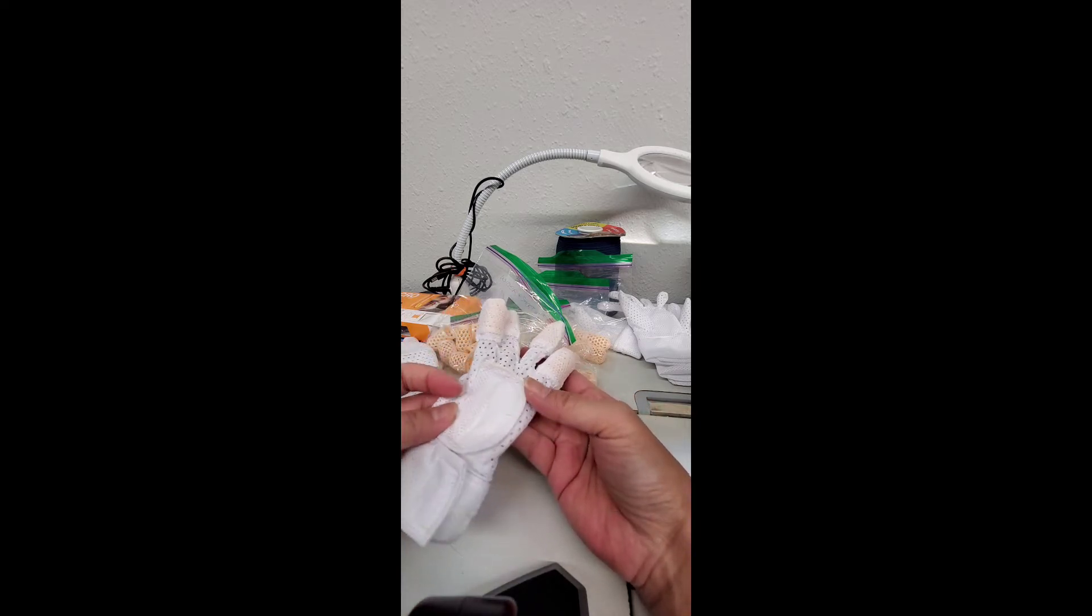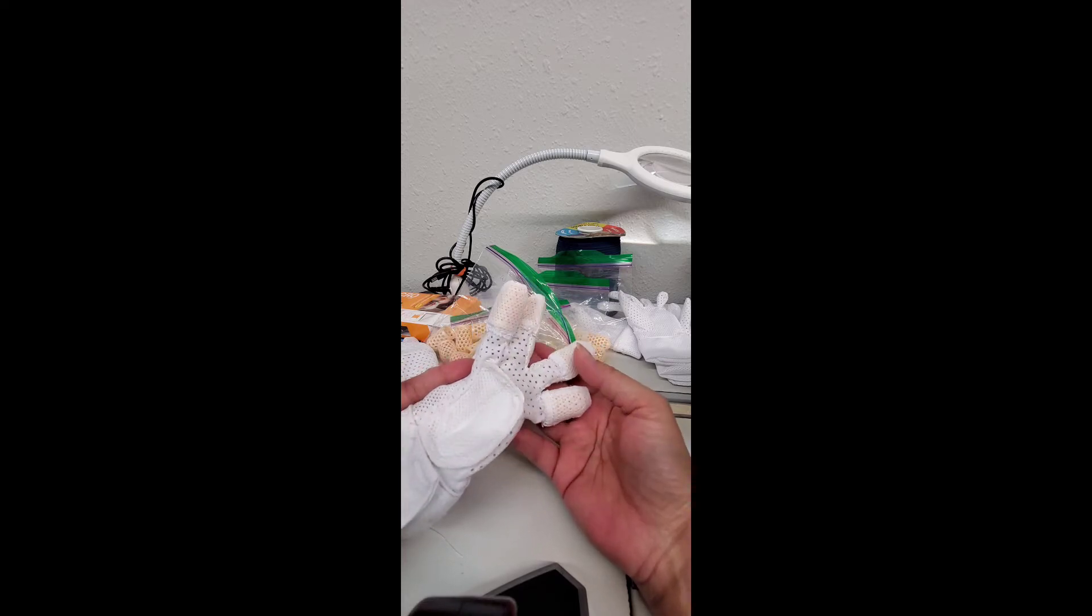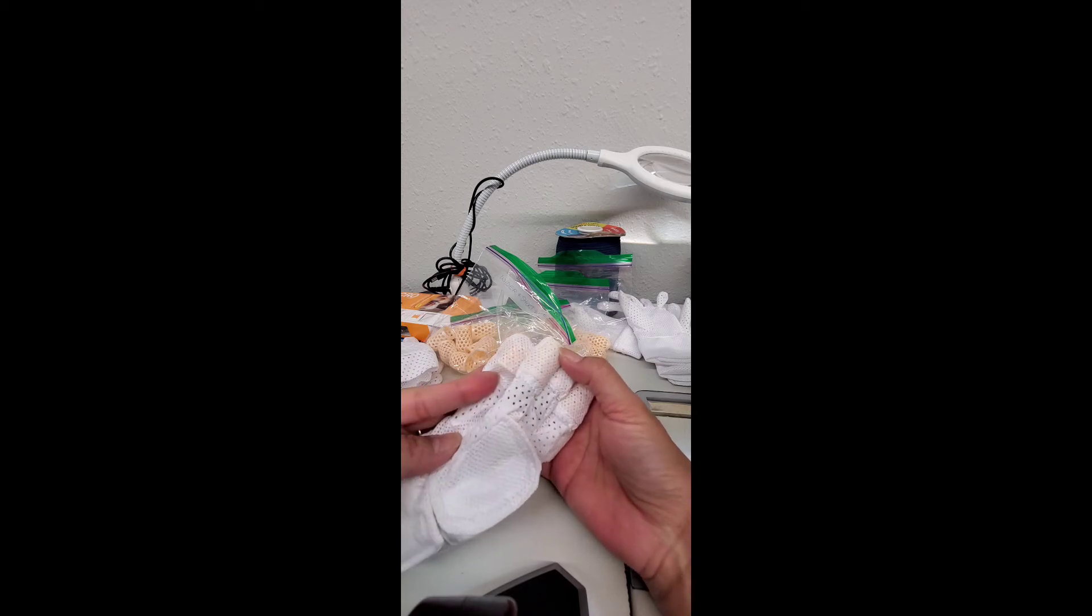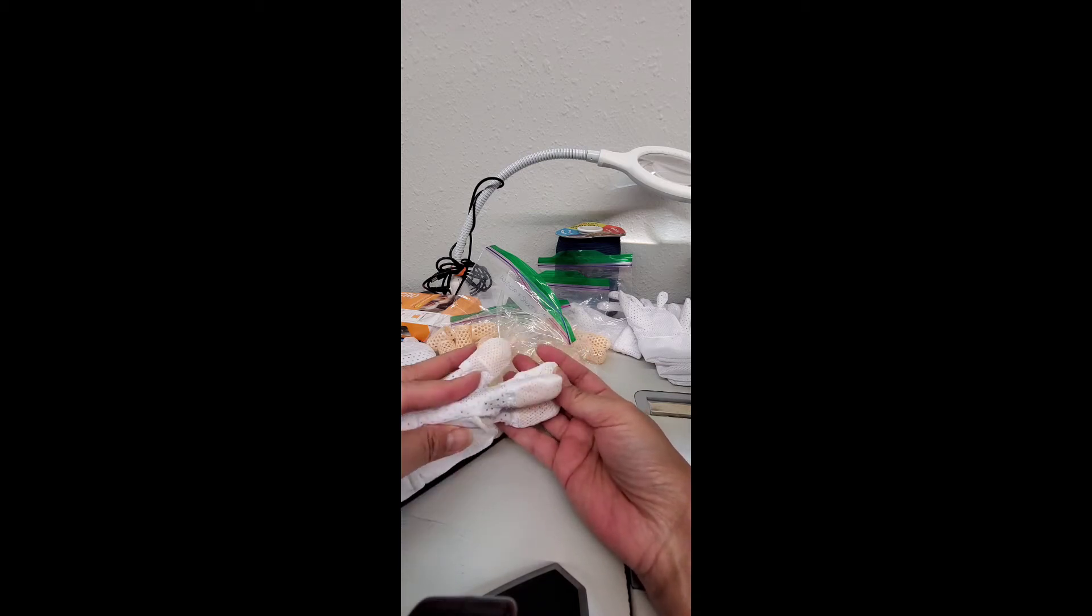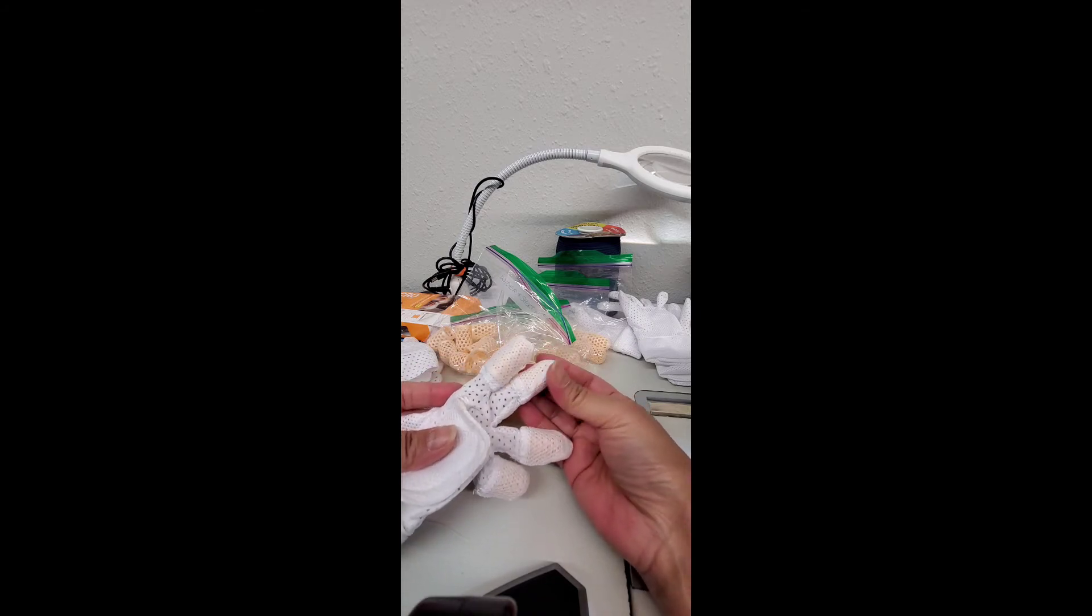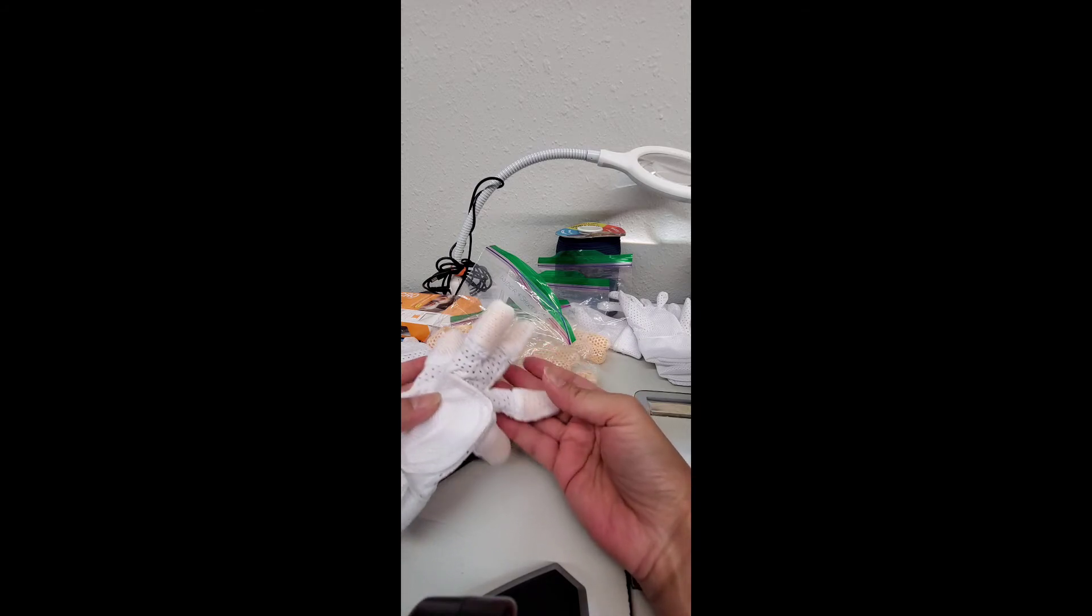Anyhow, these are for the kiddos that want to still move their fingers and grab toys. I mean, you might not be able to grab toys very well because your fingers won't flex as much, but again, safety is the priority here. So these tips will definitely protect them from biting down on their nails, on their fingers.